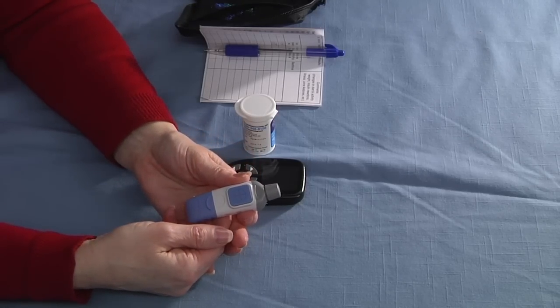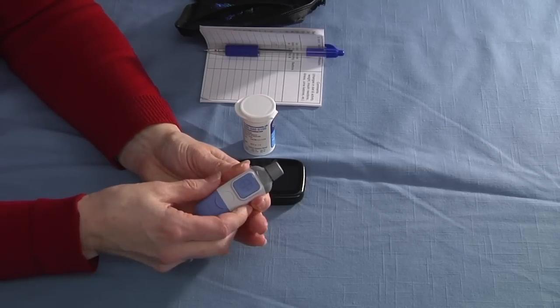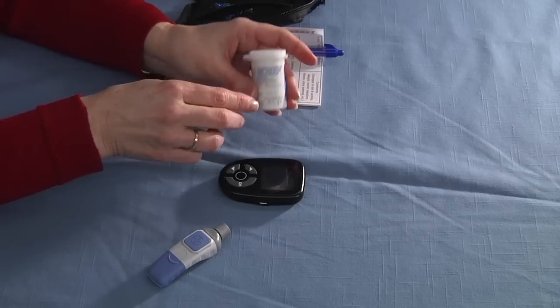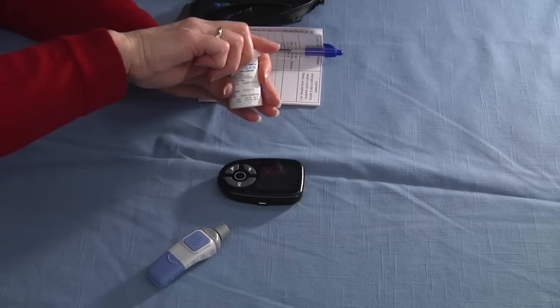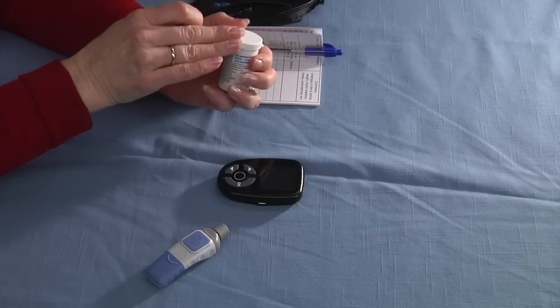Most lancet holders work on a spring, so I'm simply cocking this and it's going to be ready to use. The next thing I'm going to do is get my vial of strips, open it, closing it.